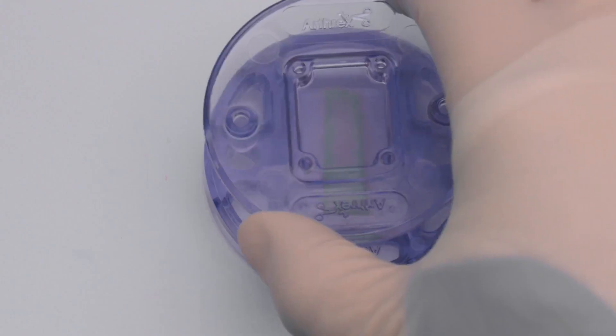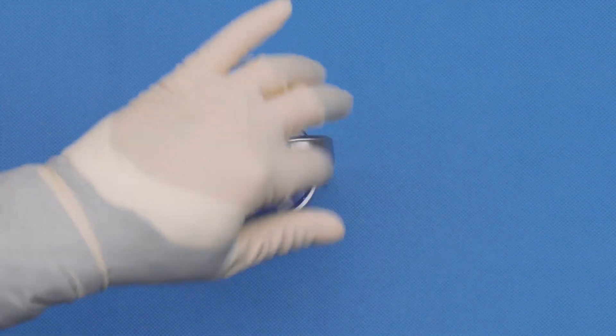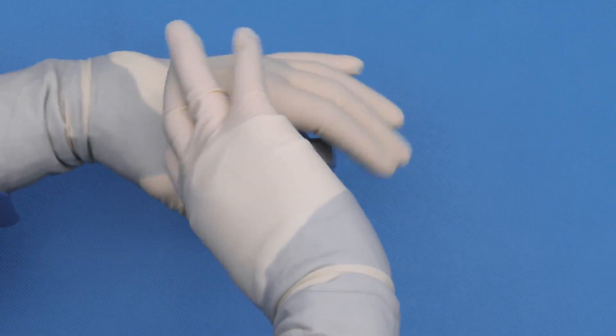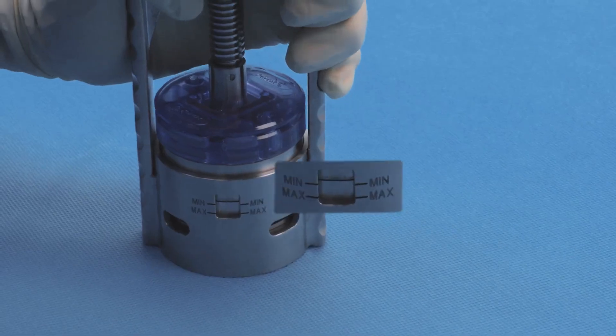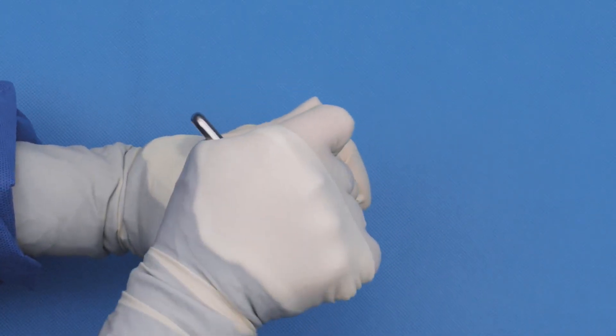Place the cover plate on top and load the plates into the press, rotating a quarter turn until the plates are locked into place. Rotate the handle to provide compression until the indicator line is at max.